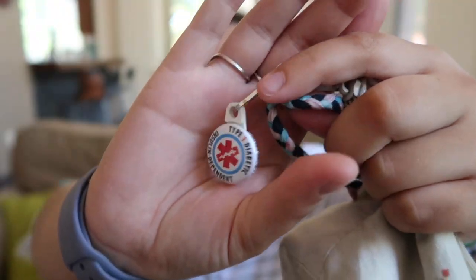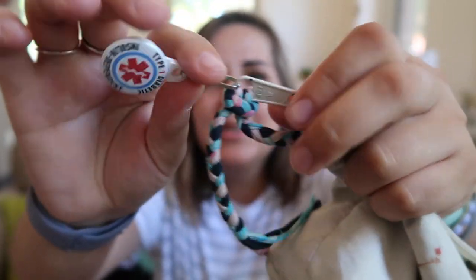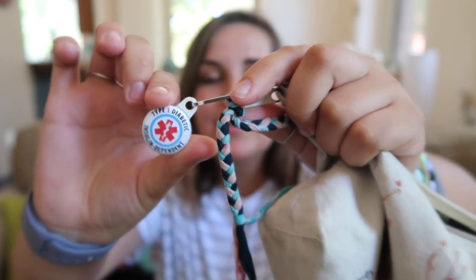That's pretty much it for today's video. I just carry all my stuff in this little pouch — just the necessities for type one. I don't carry an extra Dexcom because those are very bulky and not as much of a necessity as an extra pod or syringes. Oh, I didn't mention — I have this little thing on the zipper of my bag that just says 'type one diabetes.' I got it on Amazon and I'll link it below. Some people use specific diabetes bags with compartments, and I love those too, but I love this one because it supports The Tote Project.